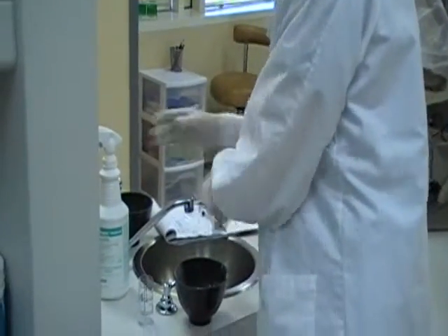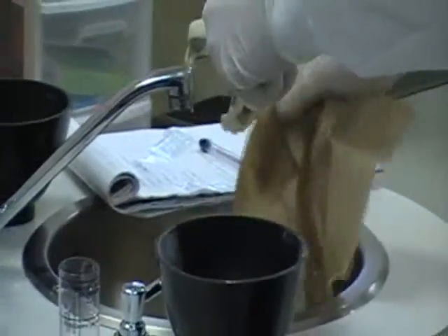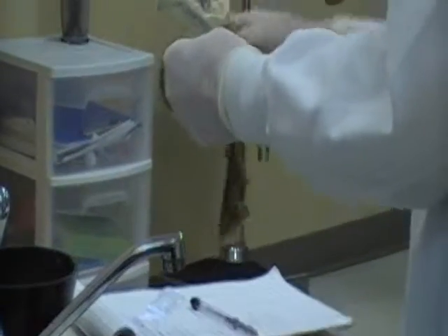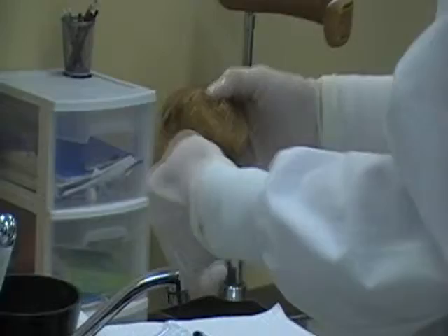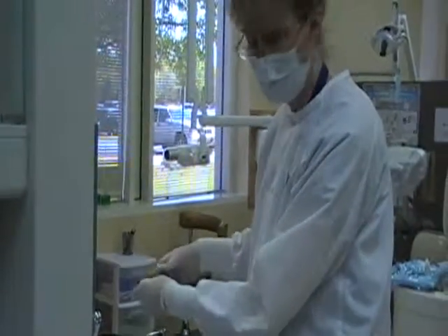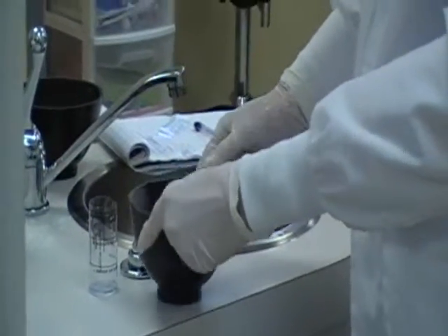Then what we will do is use disinfectant — remember, we're spraying it, we're not dousing it. And then we will wrap it in a damp, not soaking wet, but a damp paper towel so that it doesn't dry out through syneresis. Then we will place it tray side down in the bowl.